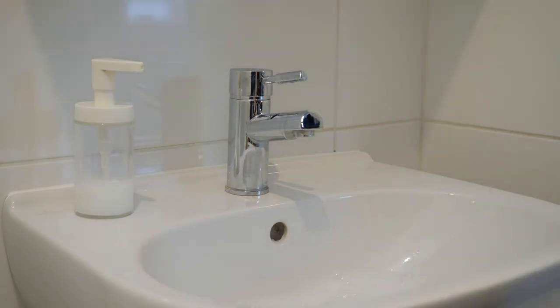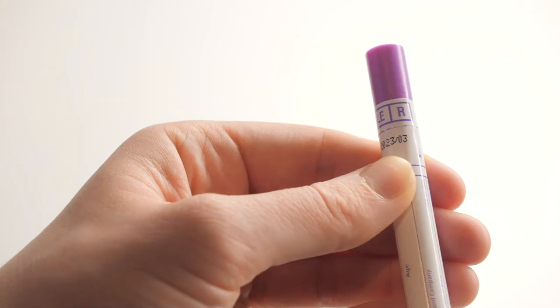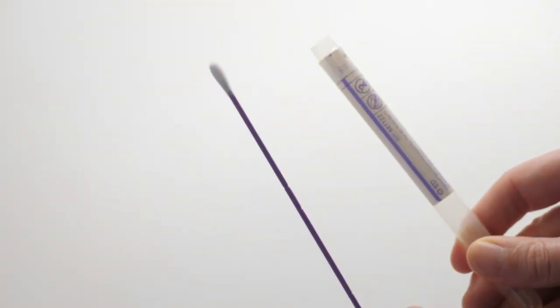Then remove the swab from tube. Do not use if the seal is broken and avoid touching the tip of the swab or laying on any surfaces.